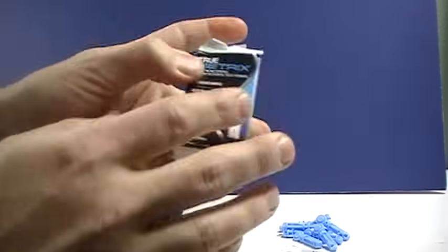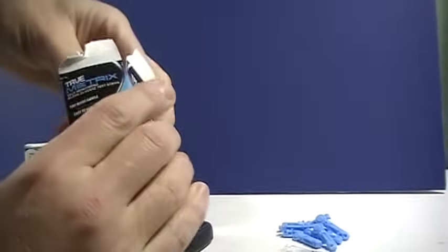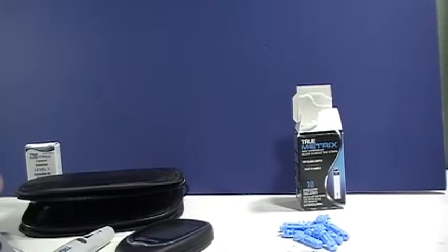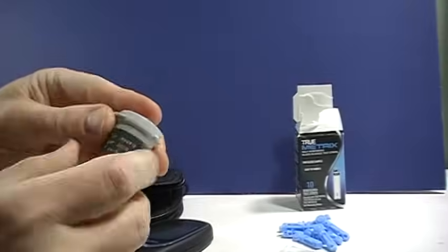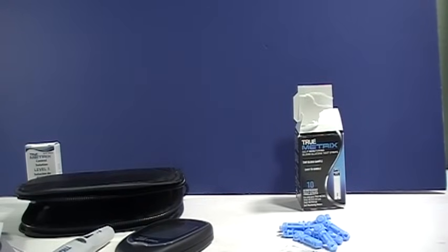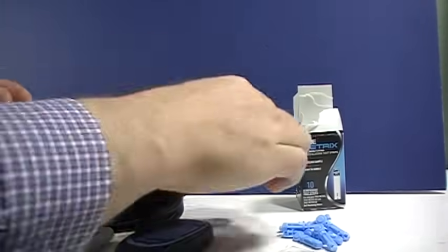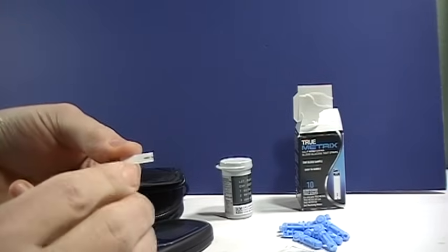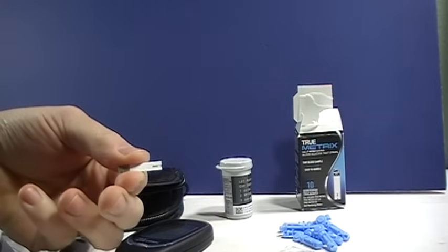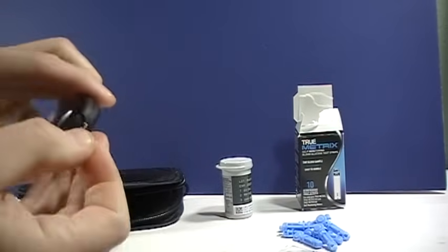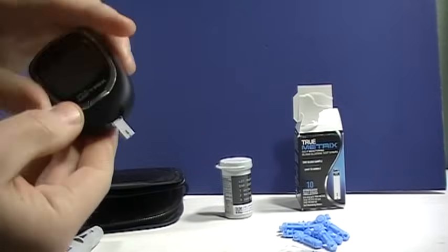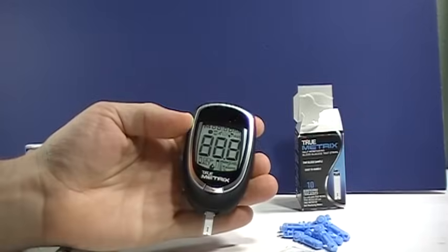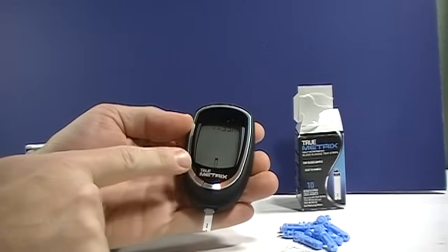So it's really simple, we'll just show you how to get started here. Of course you want to open your test strips and make sure that they're in date. You just remove a test strip and look closely. This portion is where the blood will be drawn into the test strip and the test strip just goes in the meter like that. The meter will power up and now if you notice it's cueing you to put the drop of blood, flashing by the test strip.